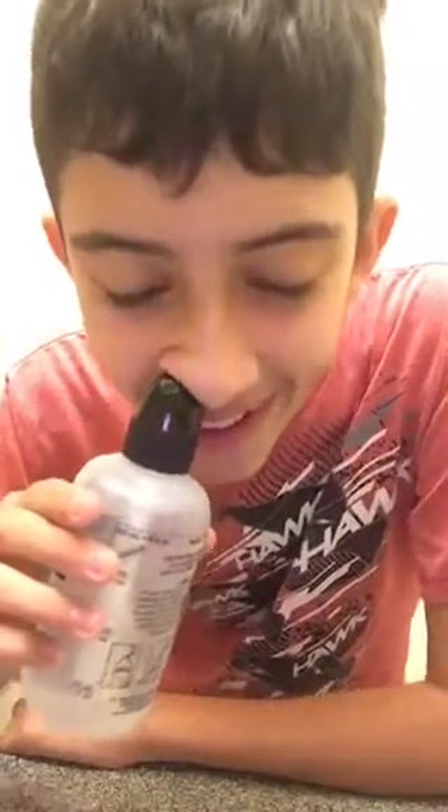Get a little towel so you can take a break and just blow or spit, whatever. Okay, and go — three, two, one. Just relax. This feels so good! This is so easy.